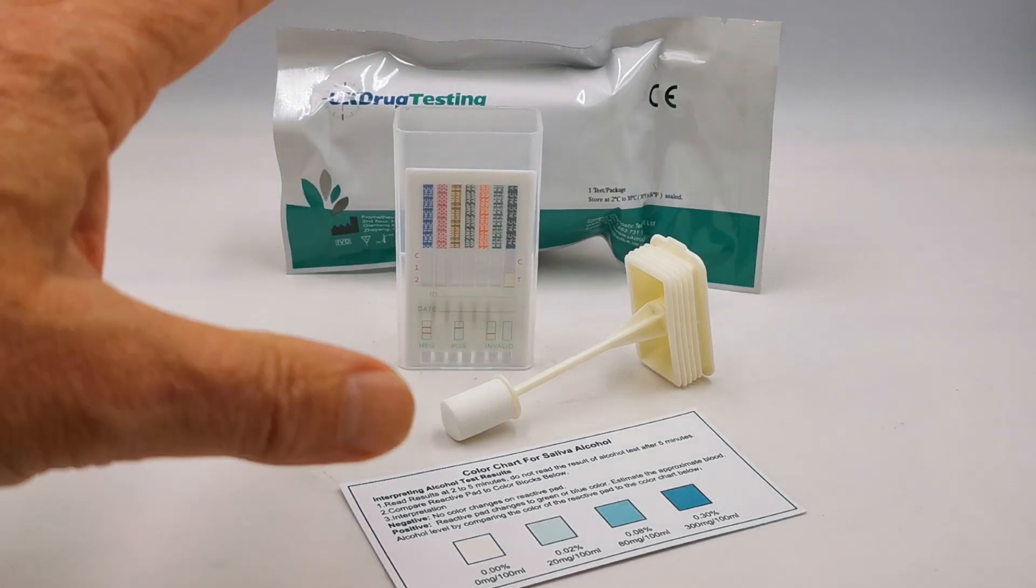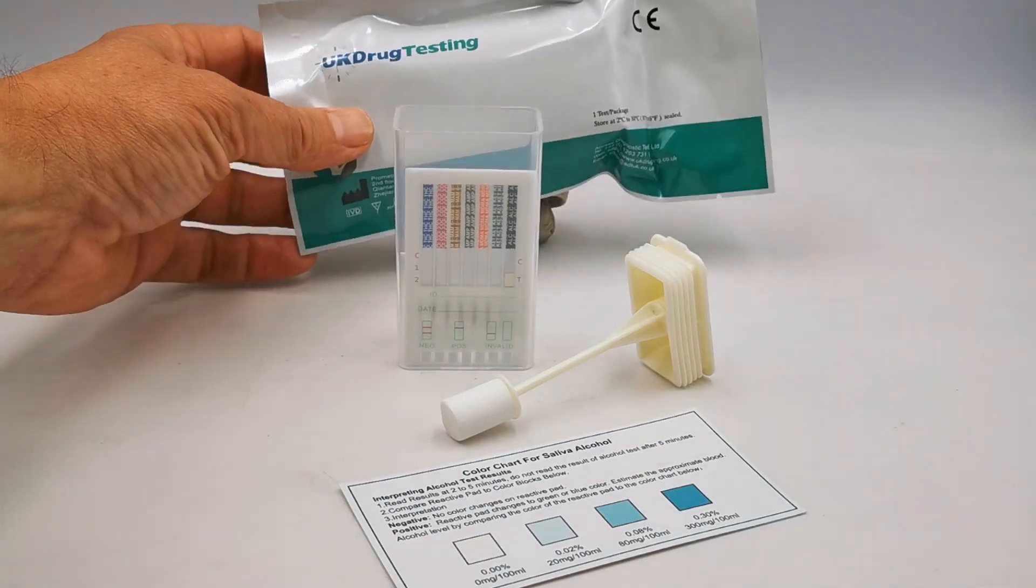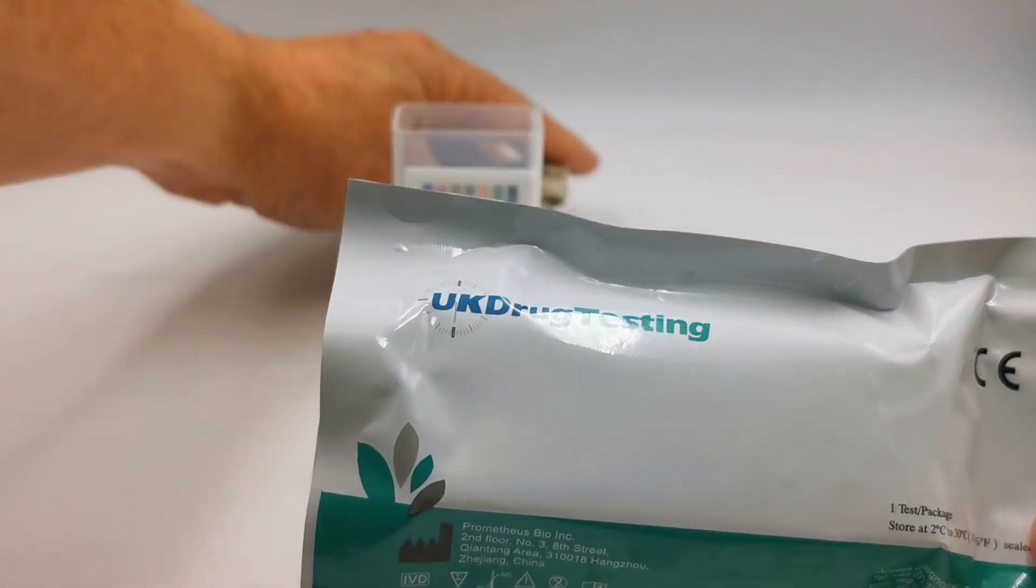In front of you is the foil wrapping and the contents. Let me just run you through this. Let's start with the foil.